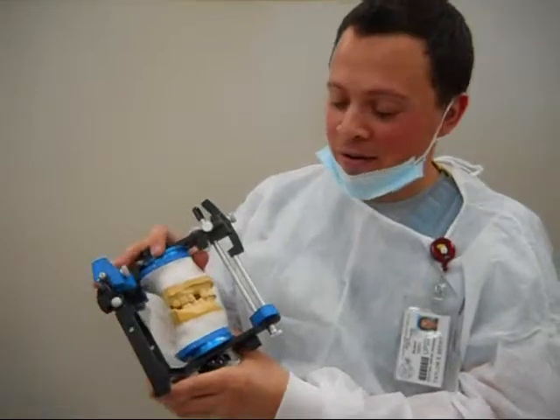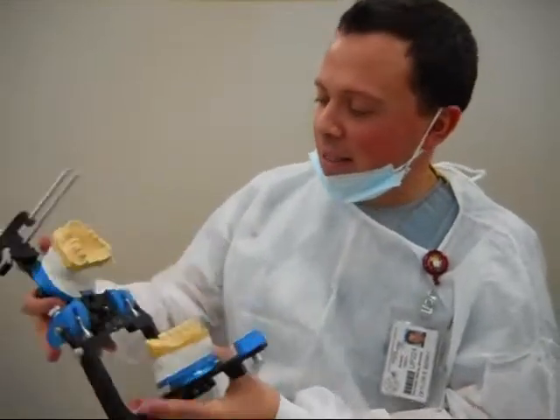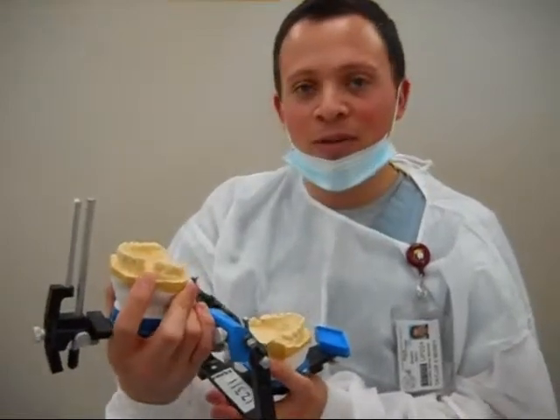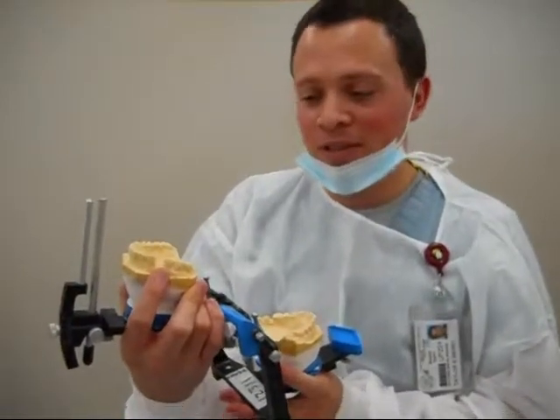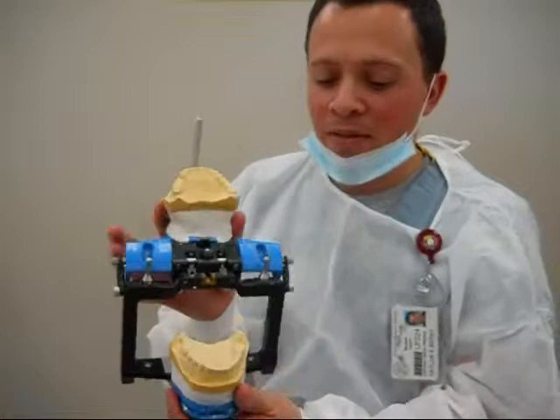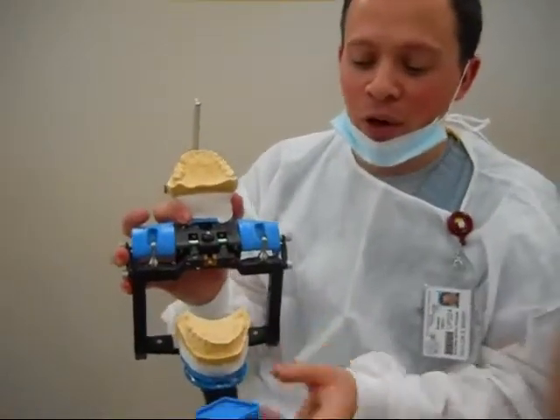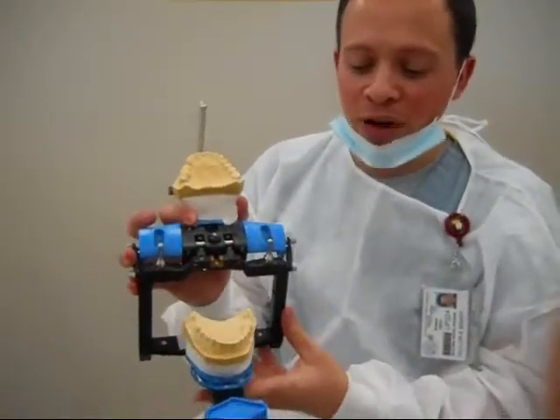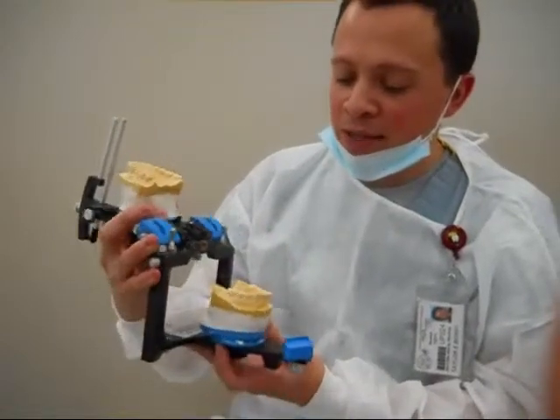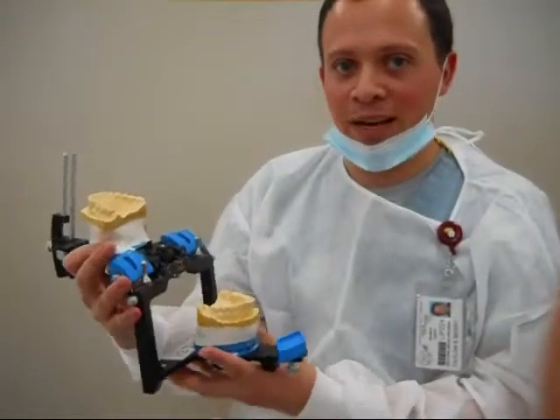So here are the models that we mounted for you, David. You can see here that premolar — or that bicuspid — that you're looking to replace hopefully with an implant. And then these are the two molars down below that you can see have broken off after those crowns came off. So we're just going to discuss your treatment options for today.